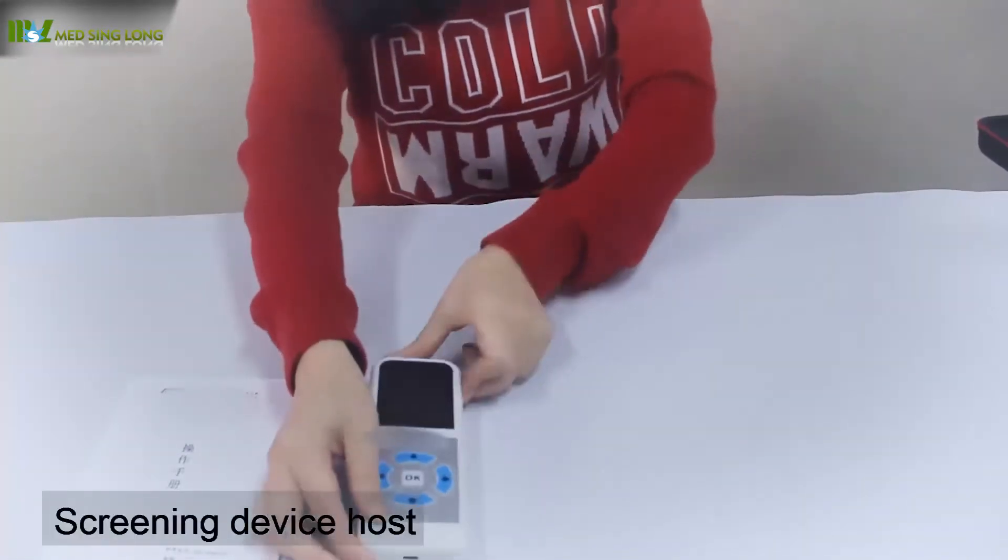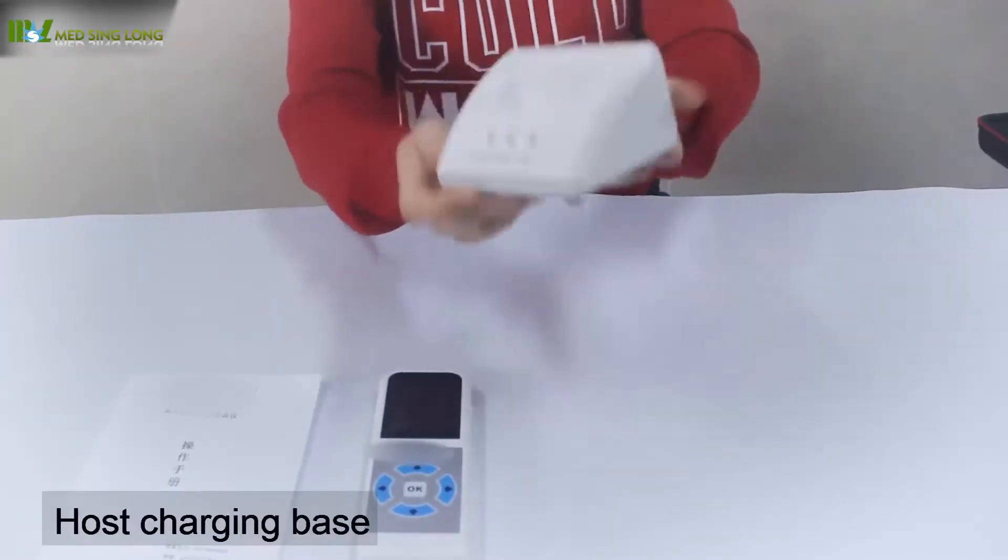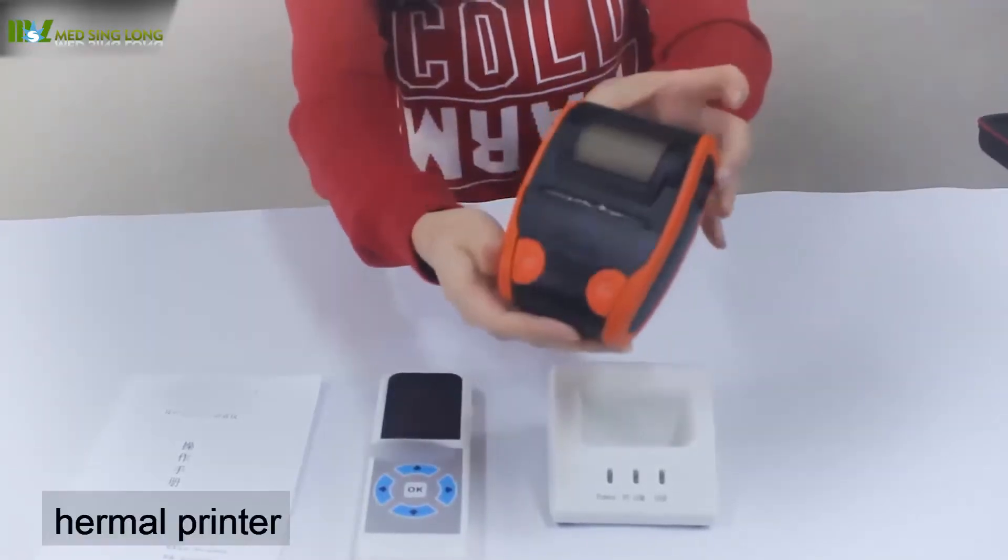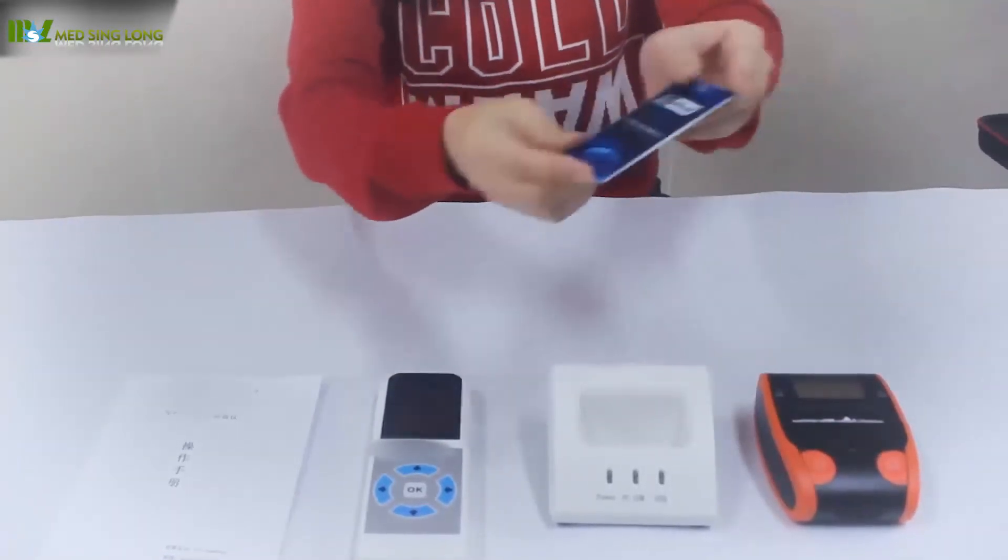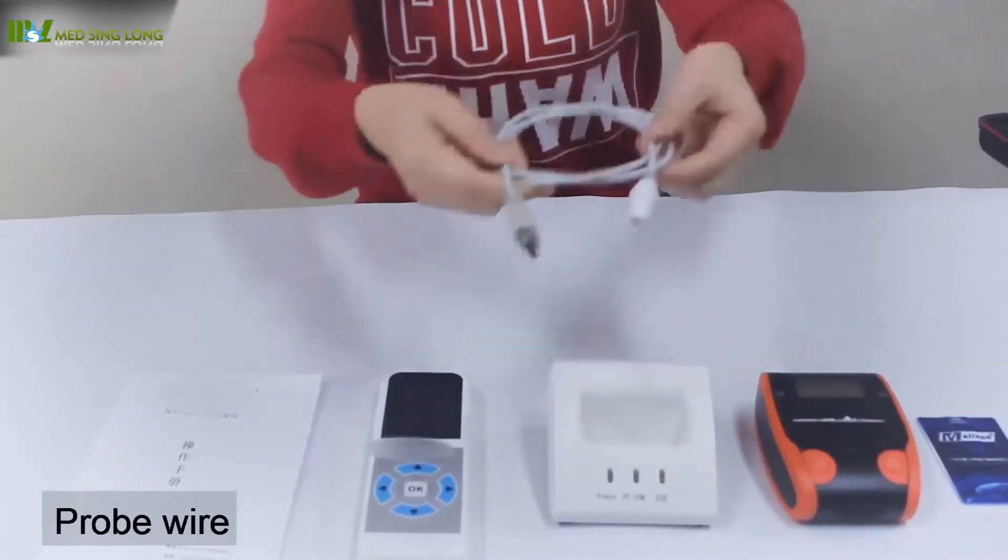The main components include the screening device host, host charging base, thermal printer, disks software, and probe wire.